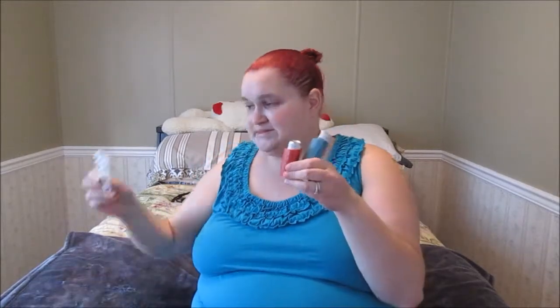I went to my doctor last Thursday and I asked her if I could get on the aerochamber — I mistakenly called it the ventilator. I was finding that just sucking the puffers straight in was making me shaky and not feeling great. She said sure, let's try it out, and I've had it for a week now and I love it.